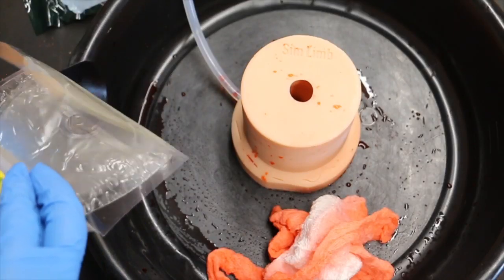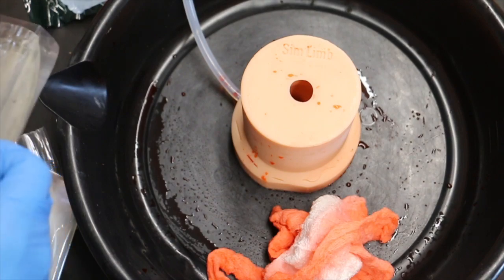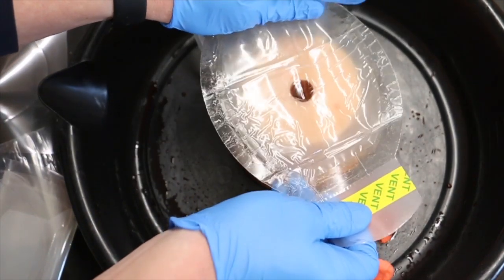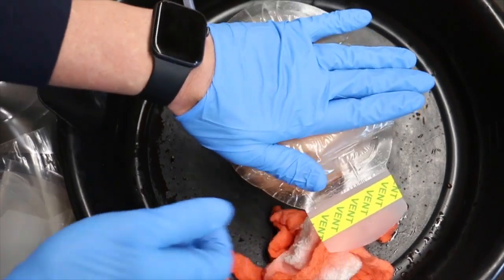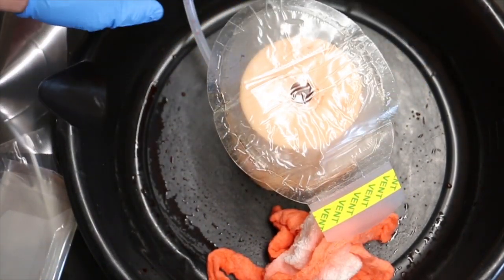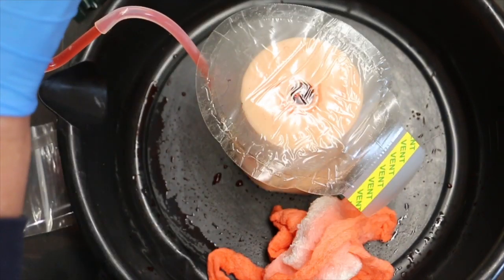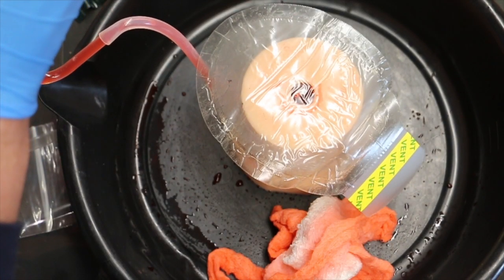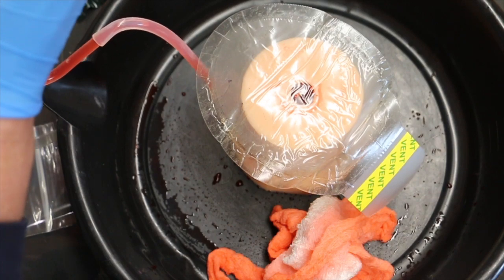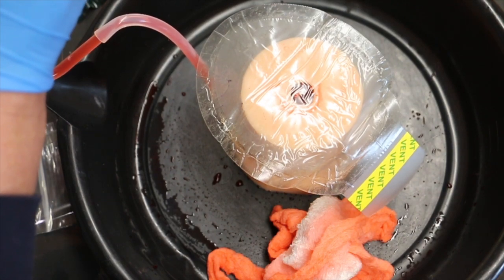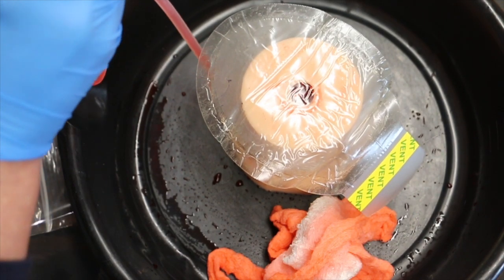Another idea you could use here is your chest seal simulator. So it's a great way to show the difference between the vented and non-vented chest seal. So you could apply this. You're going to be able to see the blood come up out of here. So you can see the air. Hopefully you can see the air coming up out of the vent on camera because we're pushing all the air out of the simulator.